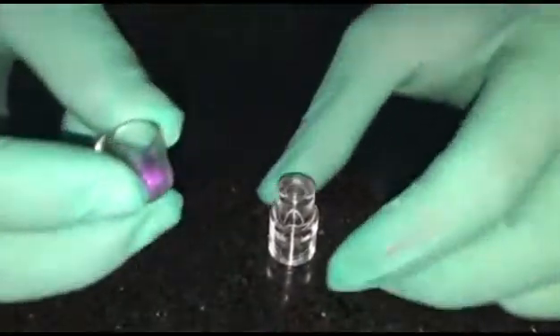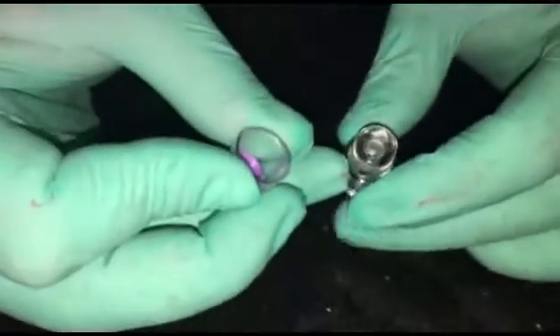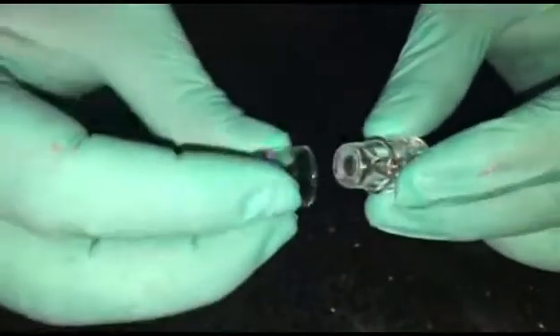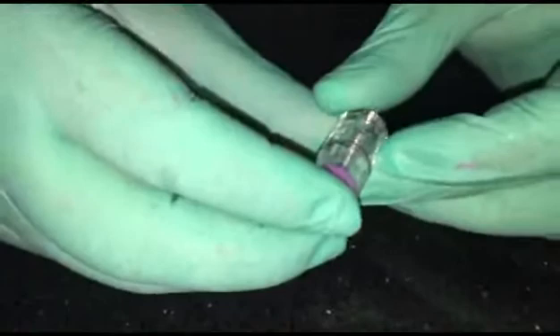What I'm going to do is place this on top of the abutment tooth, just like I would in the patient's mouth. Place it on top and then press the entire assembly together. What I want you to appreciate is how beautifully the material is flowing - we see some material extrude out as well.